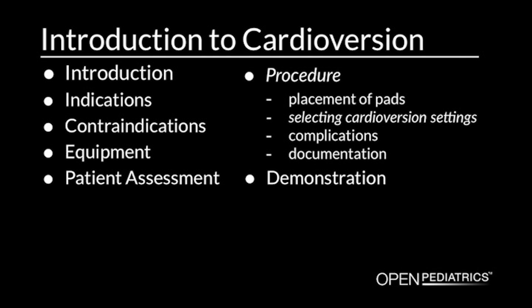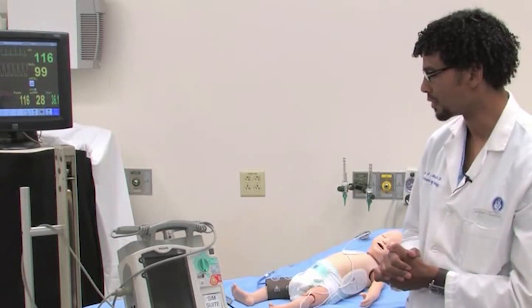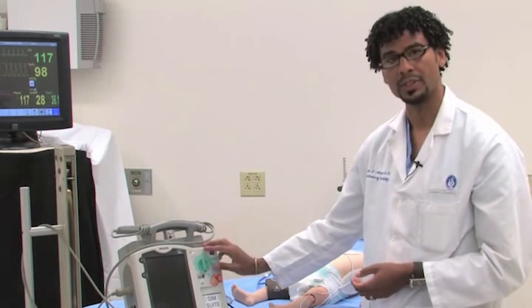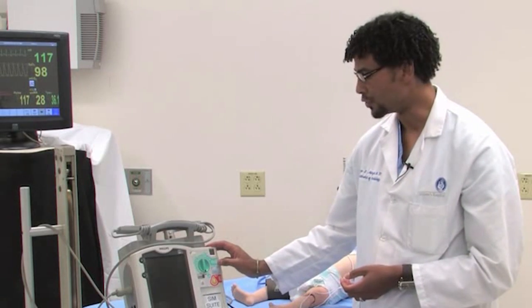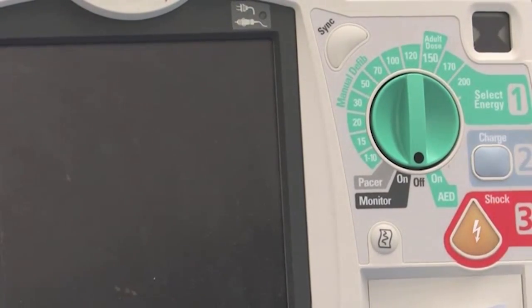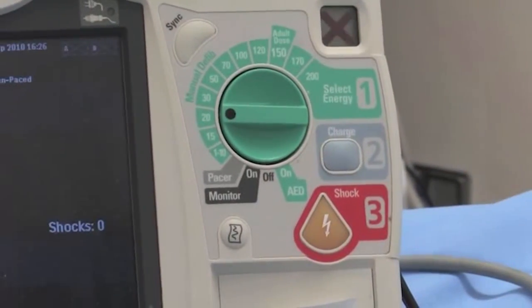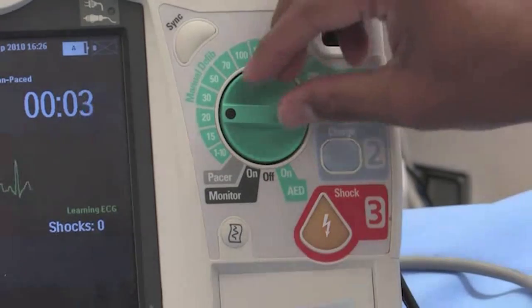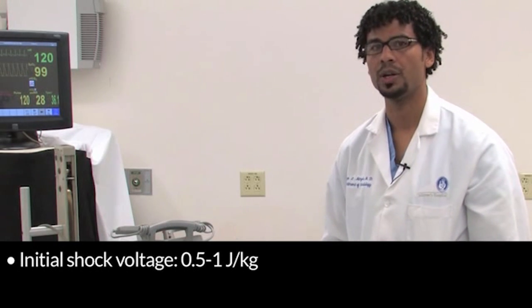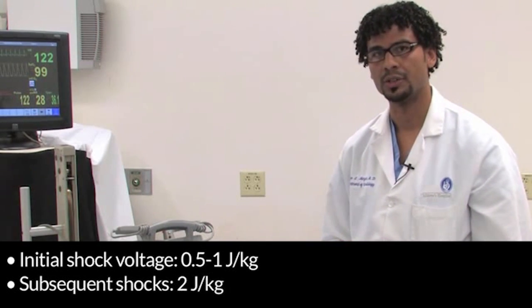To successfully cardiovert a patient, you have to have the ability to select a particular electrical energy in the form of joules on your machine. Machines have a dial that allows you to switch the machine on and then select a particular voltage based upon the patient's requirements. With cardioversion, the initial shock is delivered at an energy level of 0.5 to 1 joules per kilogram. If that shock is unsuccessful, all subsequent shocks are delivered at 2 joules per kilogram.